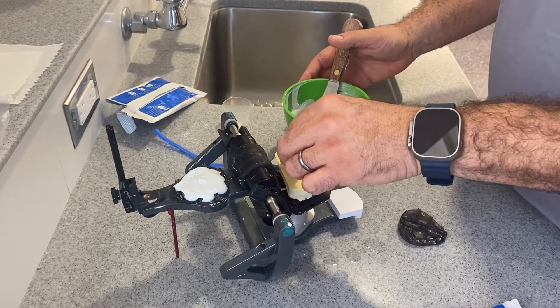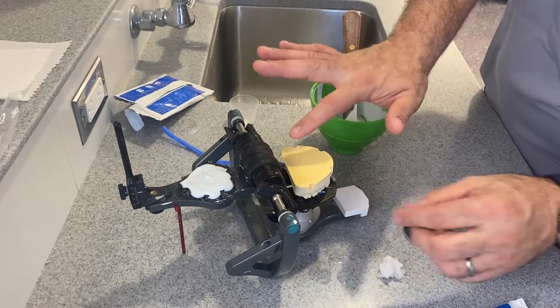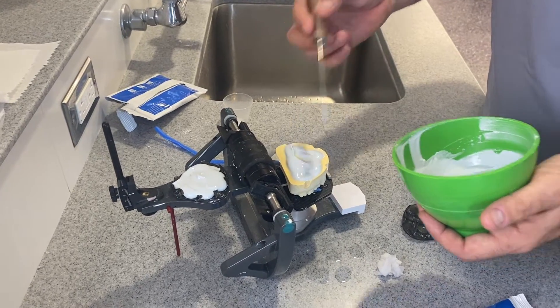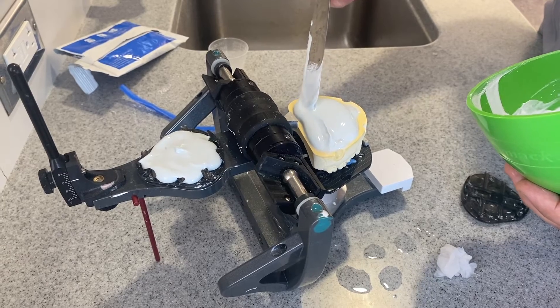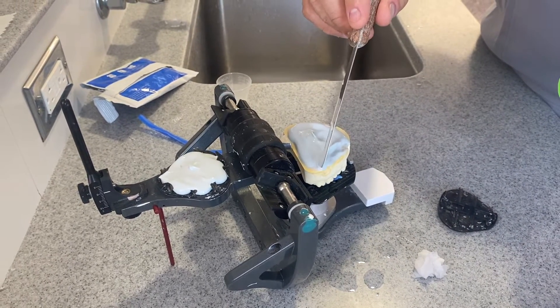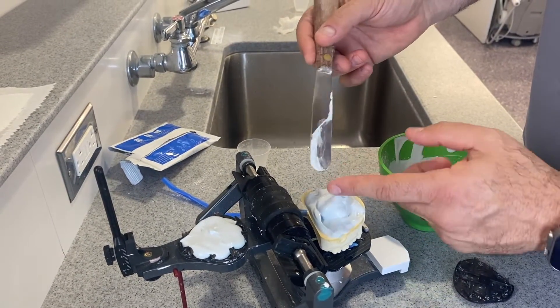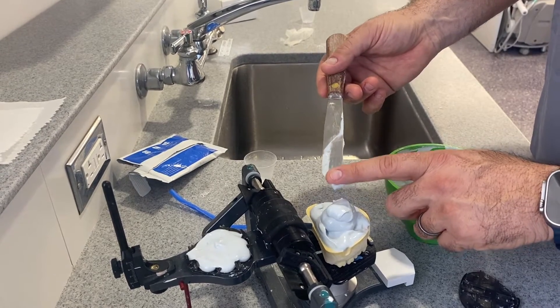Once this is done, make sure this is nice and wet — not wet that it's dripping, just that area should be wet. Start putting a small amount all over, trying to cover this area. If you see the consistency of the stone is not that runny anymore, you can put one and then put another one on top and it stays there.